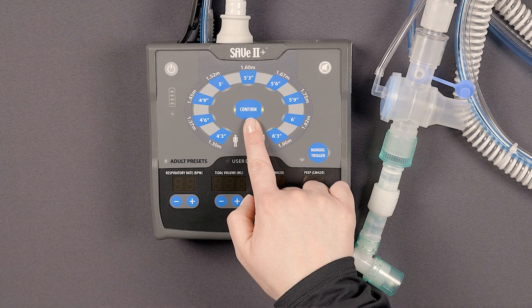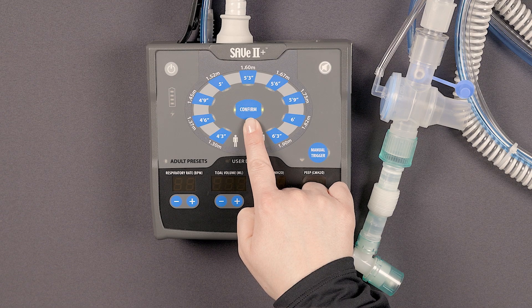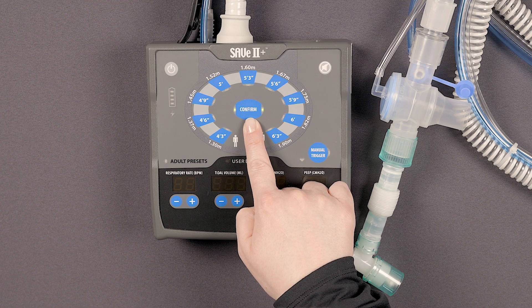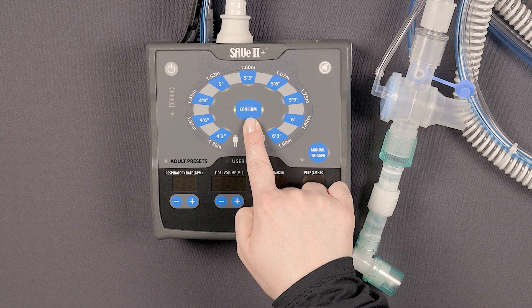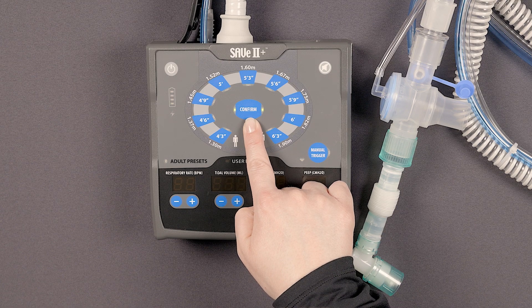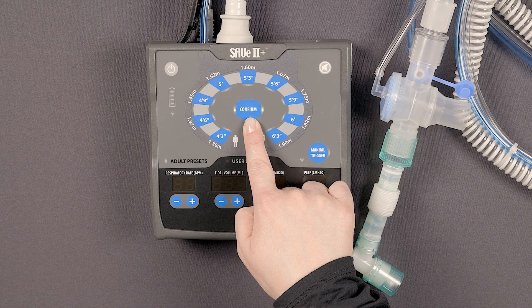This button is used to confirm any presets or adjustments that have been made to the ventilator. The blinking of this button indicates that it should be pressed to activate ventilation at the new desired settings.